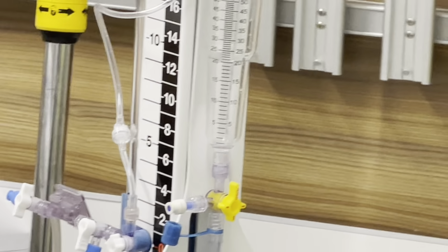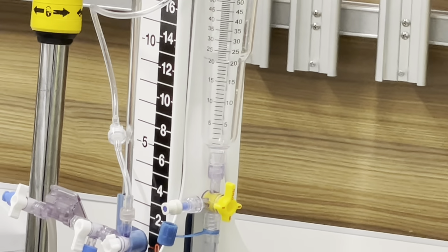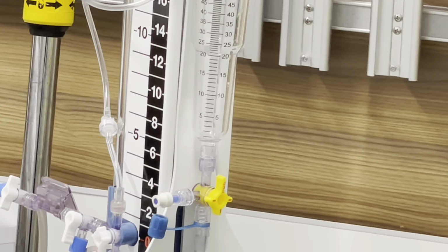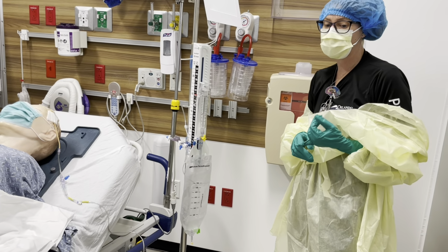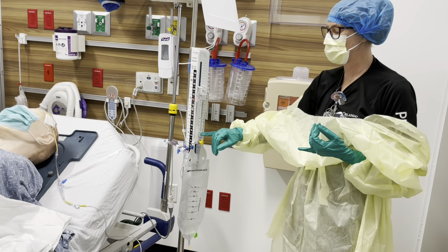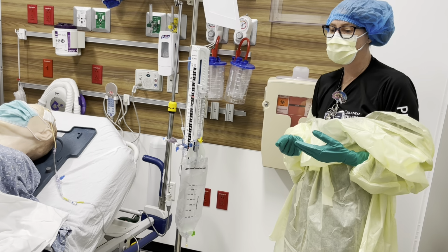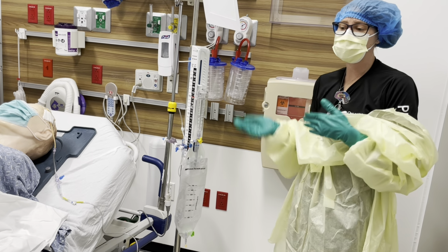You really shouldn't be having an insane amount of output like that. If you are, again, it's a reason to call your doctor. If you notice changes in the color of your CSF, it was clear and now it's bloody, or you were getting 1 to 2 mLs and now you're getting closer to 20, those are reasons to call your doctor.